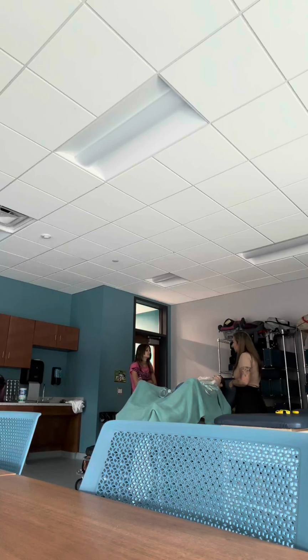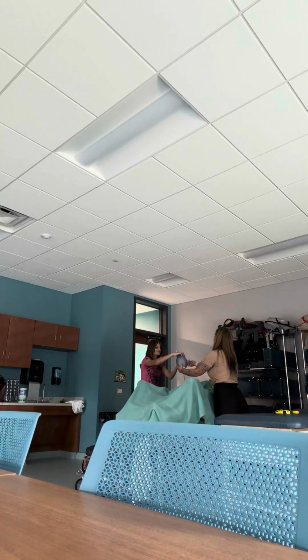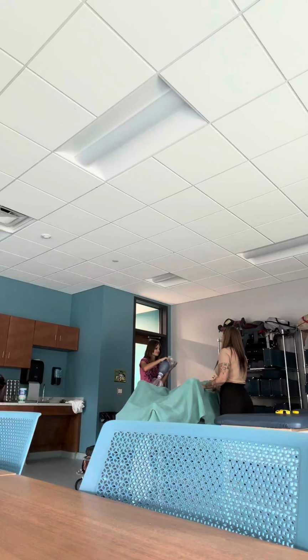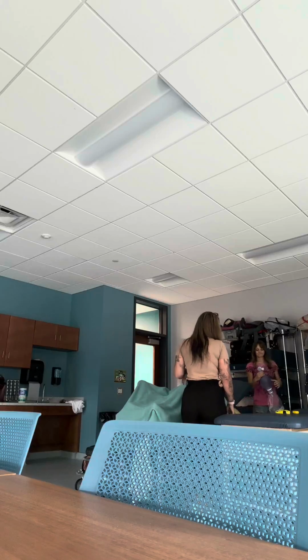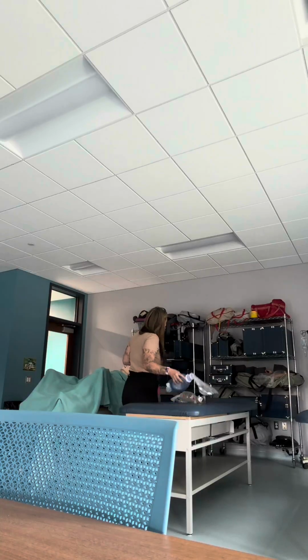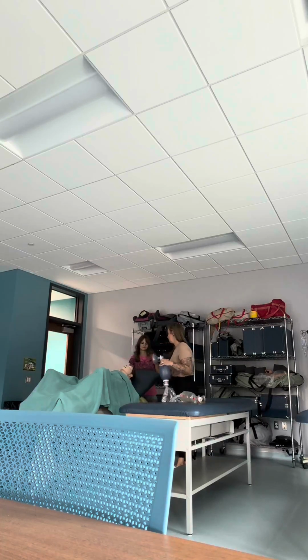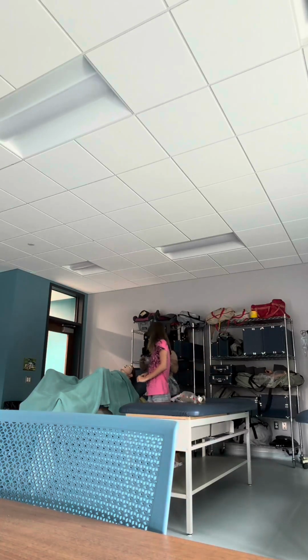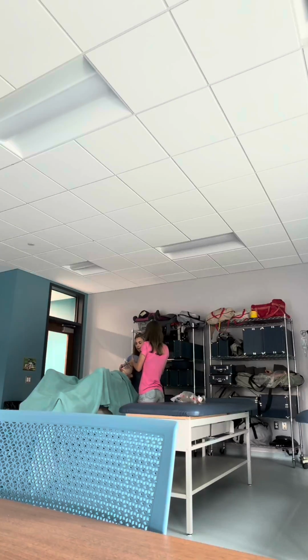Any questions so far? Okay. Would you like to practice bagging some more? Here, how about you put it together? Perfect, yeah. Come to the side so you're gonna reach. This is much more effective because we can create a better seal. Okay, so I'm gonna have you step over here so you can squeeze the bag. I'm gonna go ahead and place the bag. If you hold the bag, please. There we go. I'm gonna place the BVM.